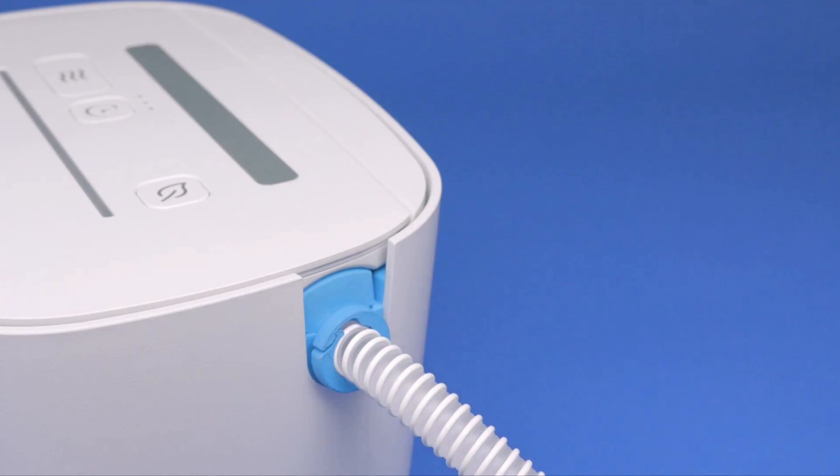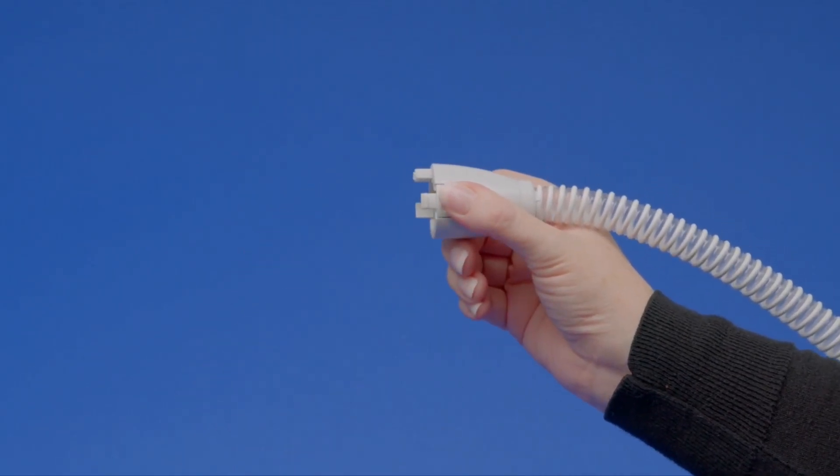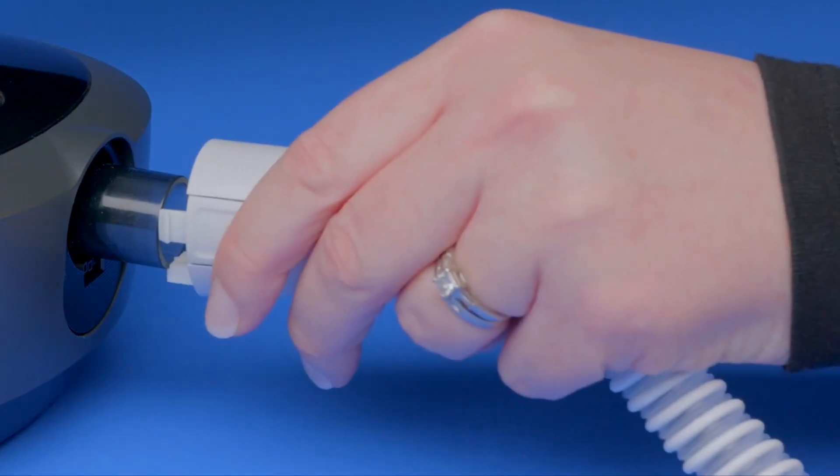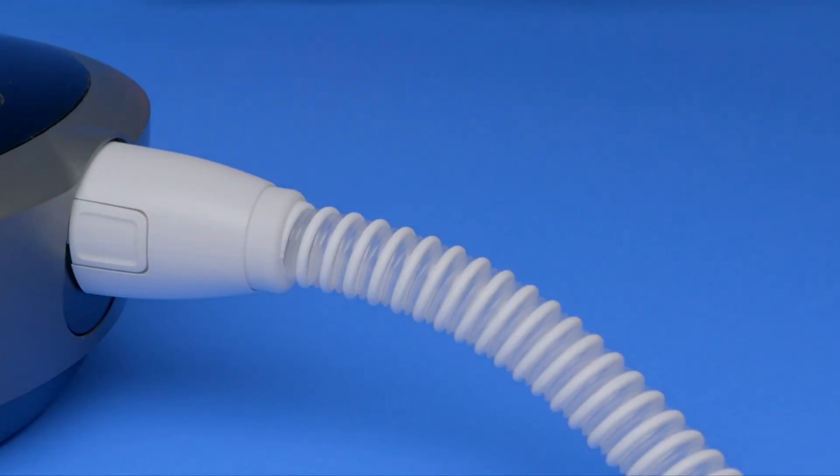Once the maintenance cycle is complete and you are ready to use your sleep equipment, remove the SoClean adapter from the CPAP hose. Reconnect the CPAP hose to the sleep equipment hose port.